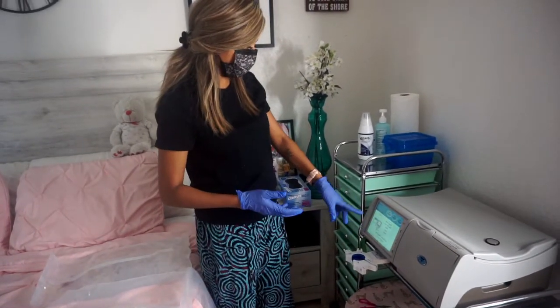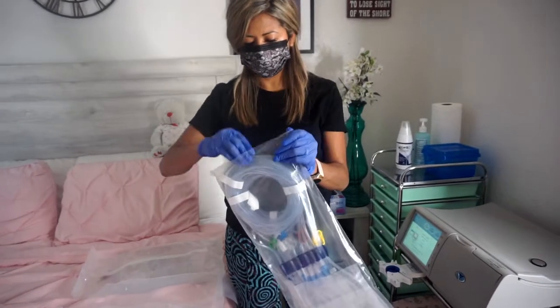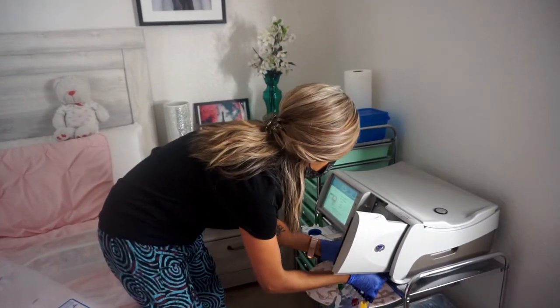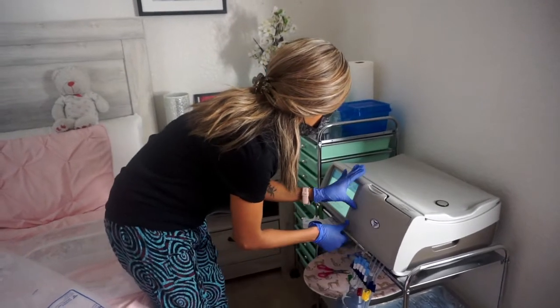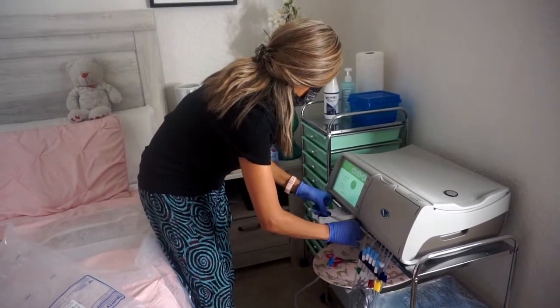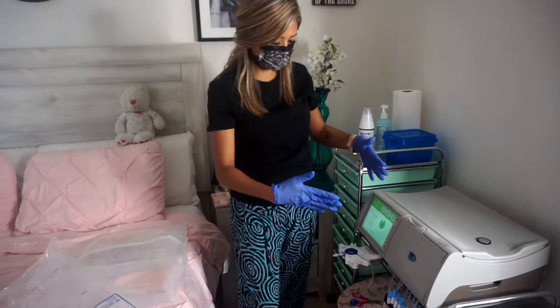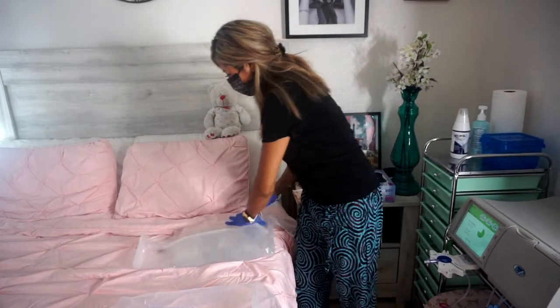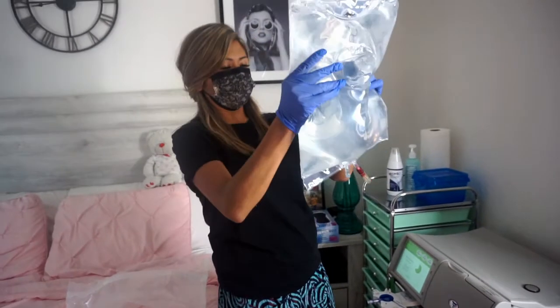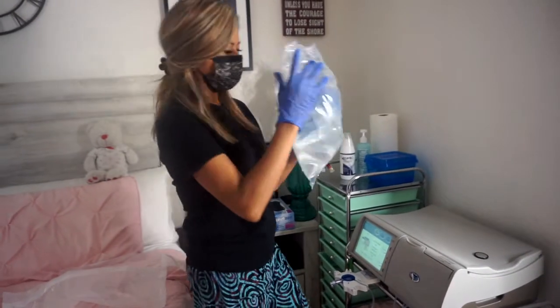It says gather supplies and insert a cassette, so what I want to do next is put this in here. The machine is recognizing the cassette now. I do my checks while the machine is thinking. Now the machine is asking me what kind of bag I want to put on the top, which I want to put this big one in here.